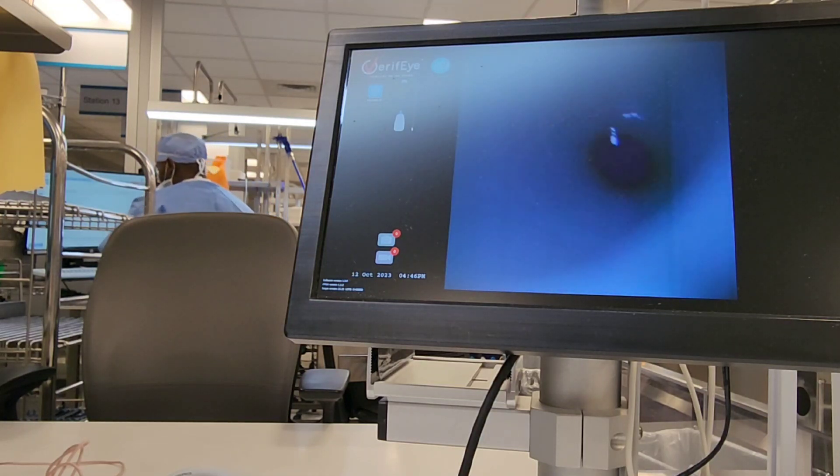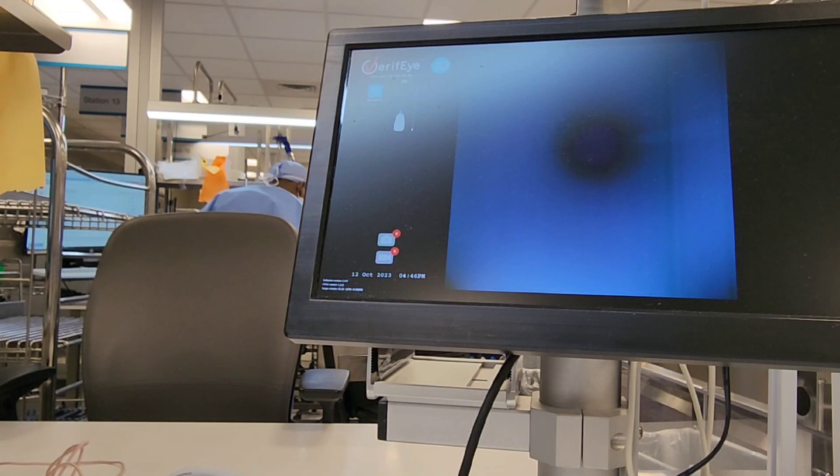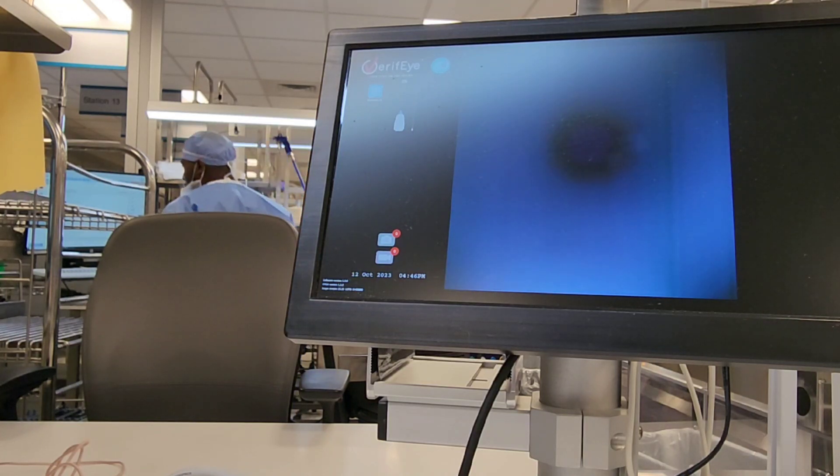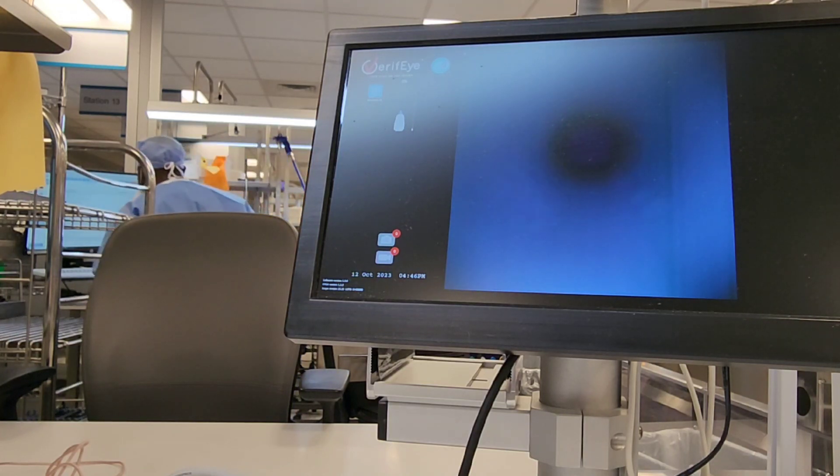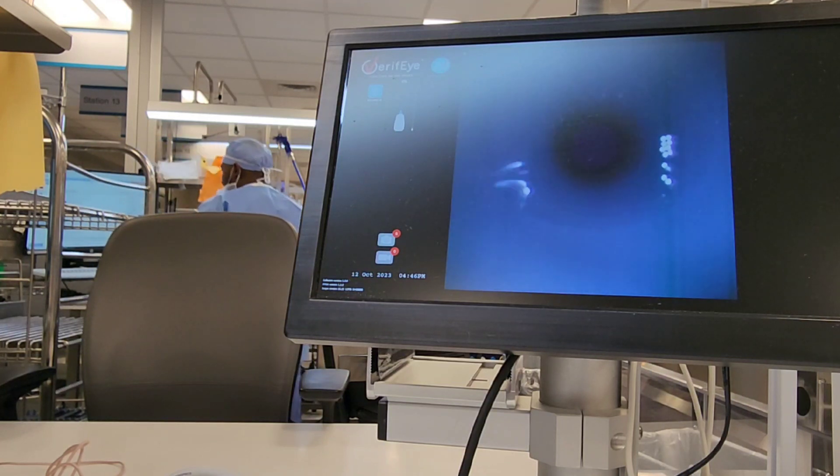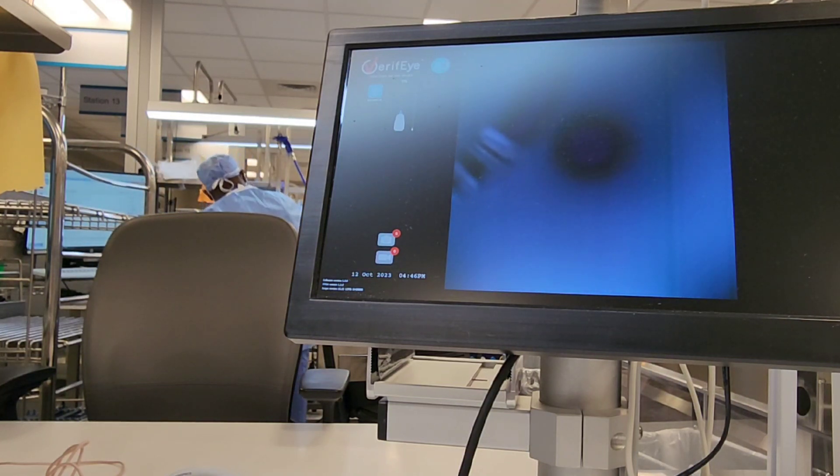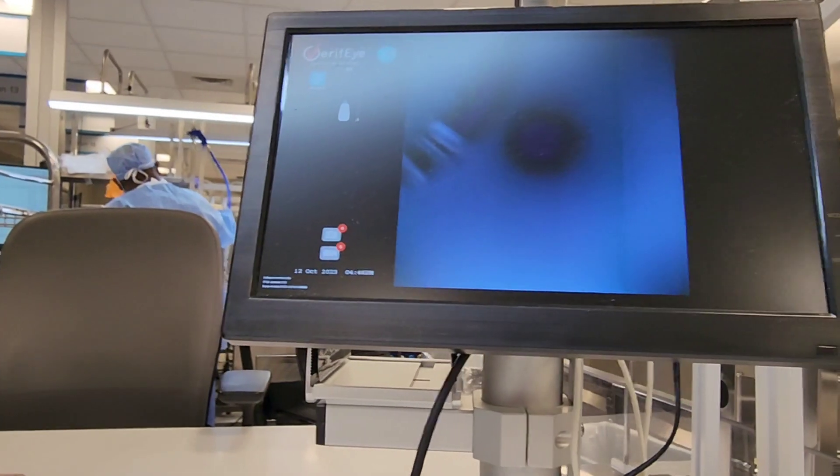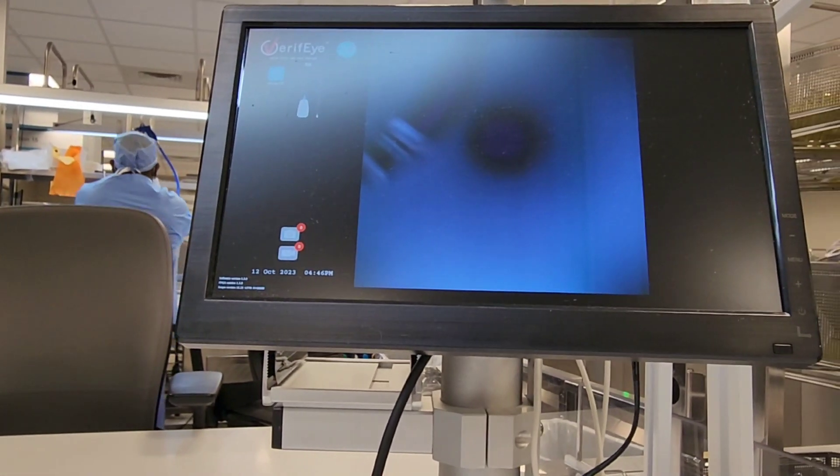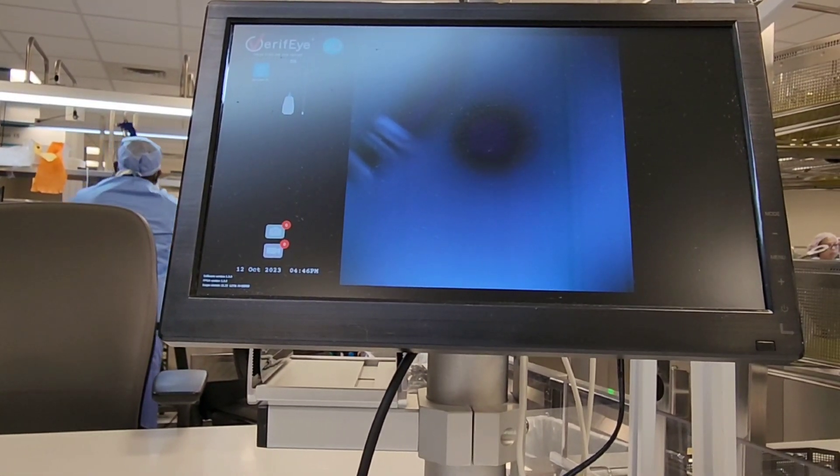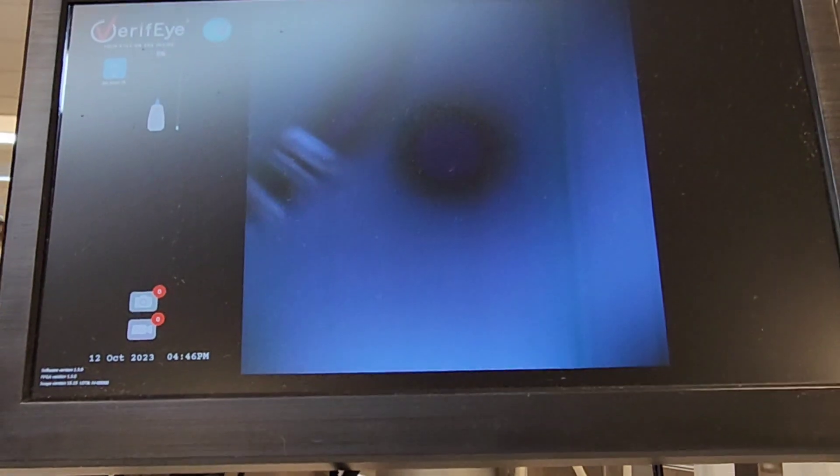We're going to advance this boroscope all the way down the internal lumen of this device, and you'll see if there's any damages or debris. Let me adjust this camera here so you can look at it a little bit better.